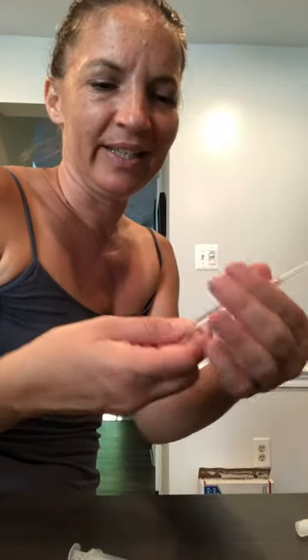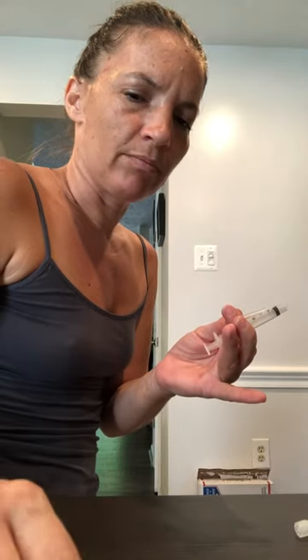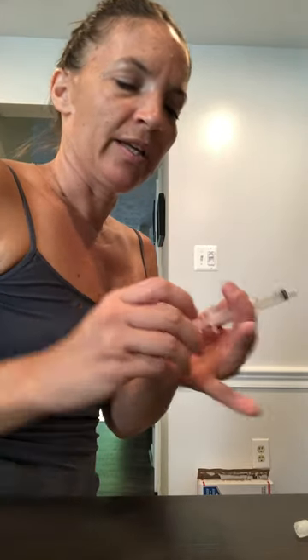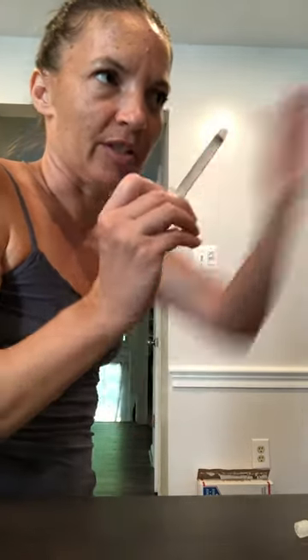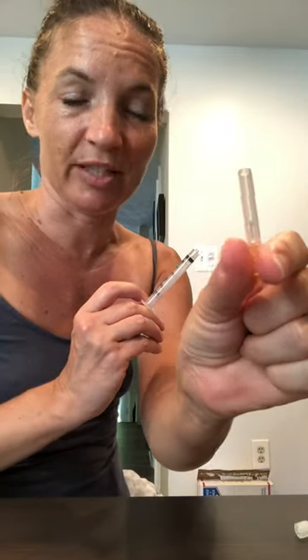Okay, here's all the proof I needed. This was the plunger that the thing just shot off of, which I can't find. This was the other needle, the other syringe that I was showing — this is the needle tip.